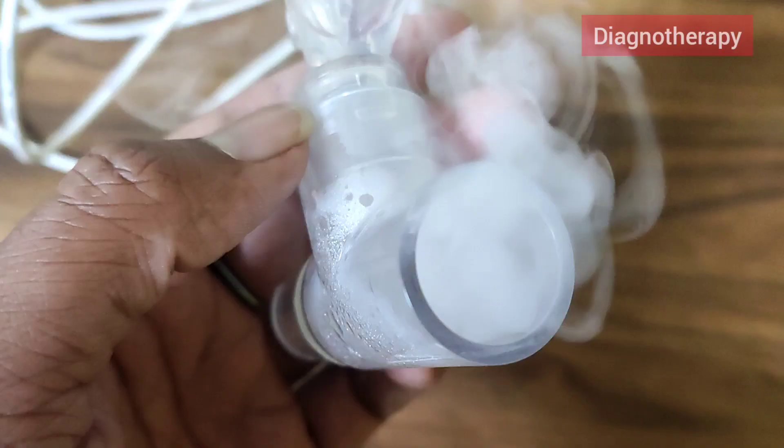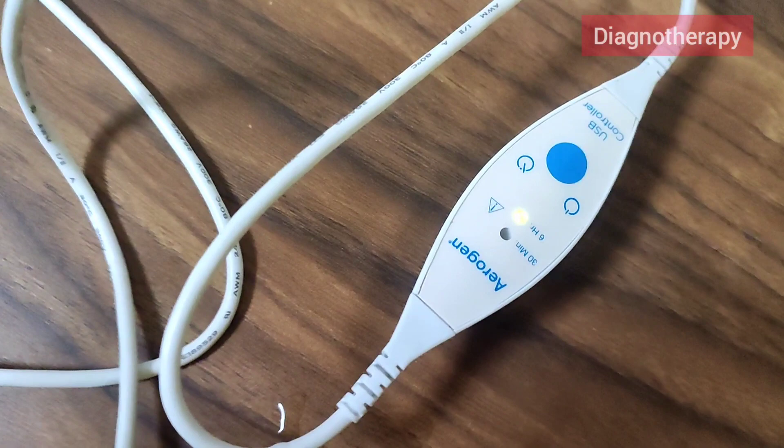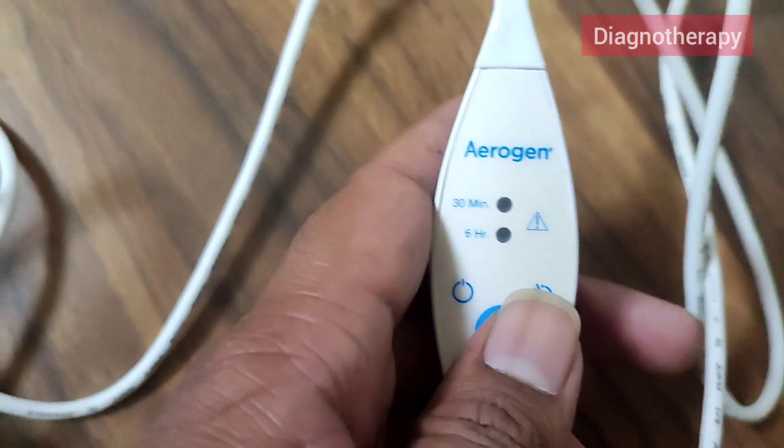Ultrasonic nebulizers create a heavy, dense aerosol from liquid, which helps enhance the effect of drugs on the patient. This uses the piezoelectric effect, where electrical energy is converted to mechanical energy, and the mesh movement creates the liquid into aerosol. This helps in converting liquid to aerosol without any change in temperature.